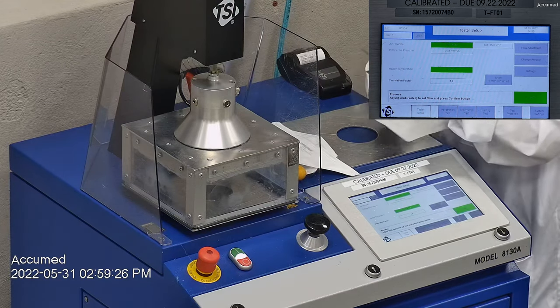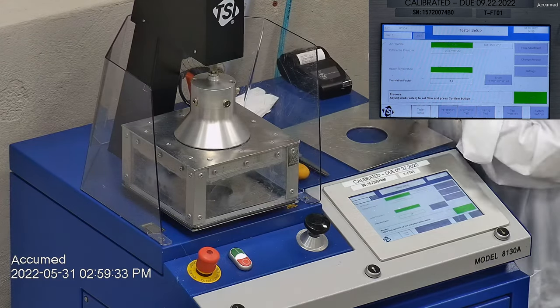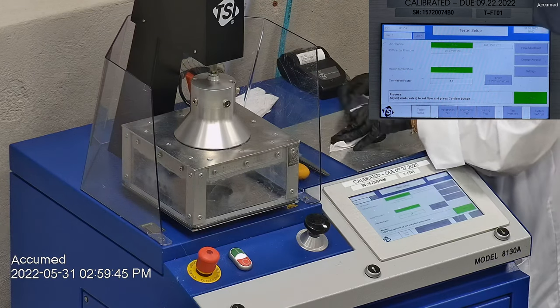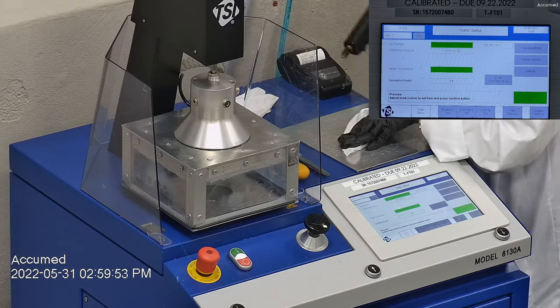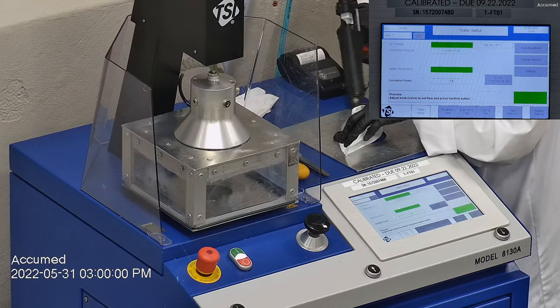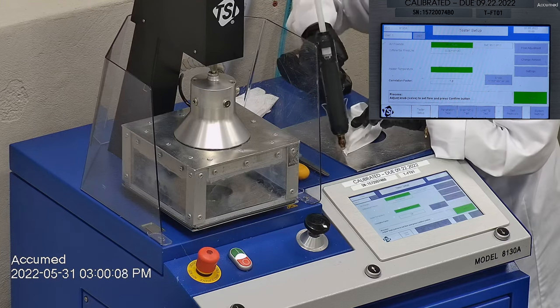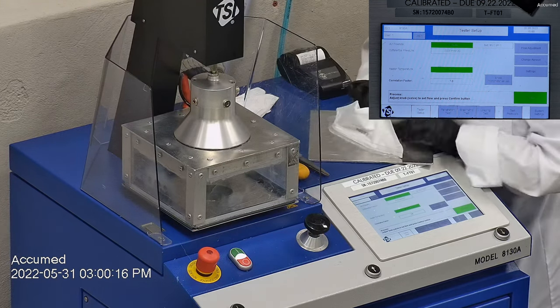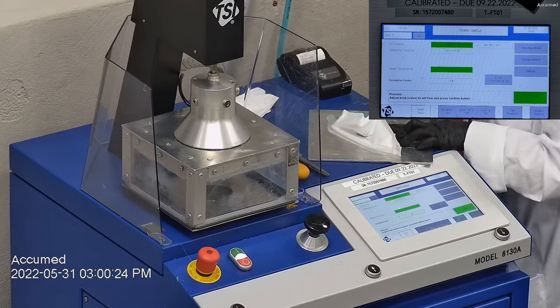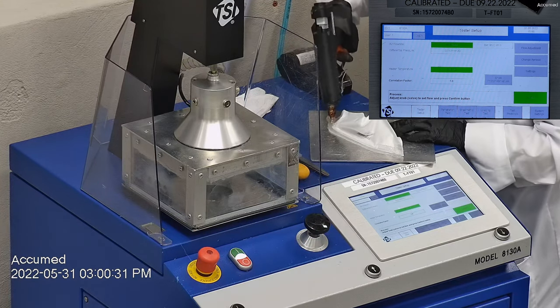Then we make sure that the respirator is properly and completely sealed with hot glue to the testing plate. When applying the hot melt glue, we make sure that there is no holes or leakage around the seal to ensure accurate results. The testing plate is then attached to the frame and the box is placed under the TSI filter holder for testing.